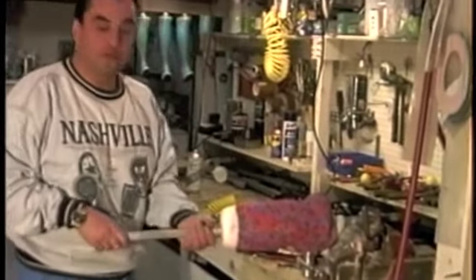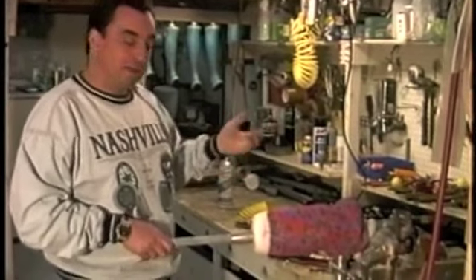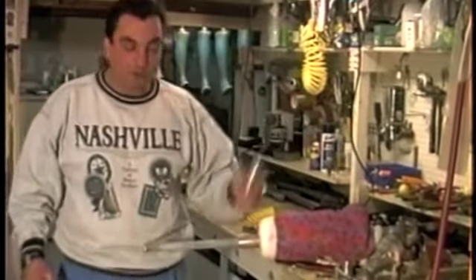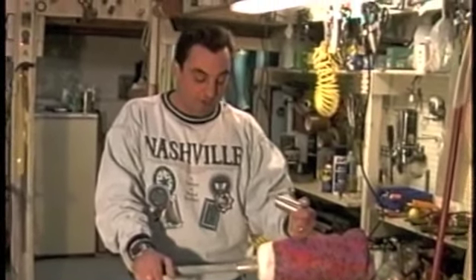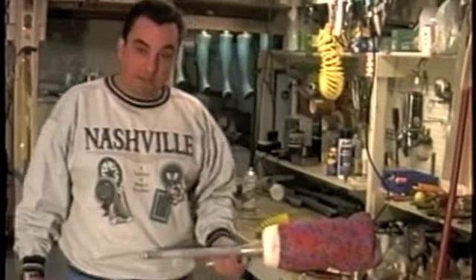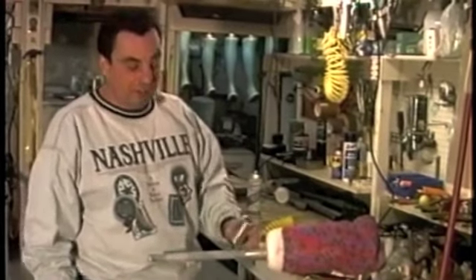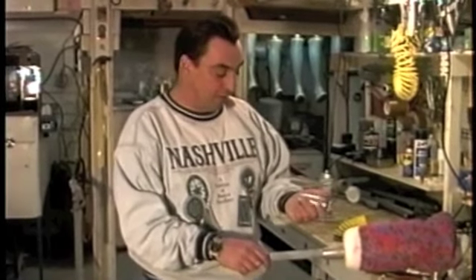You insert the molding cone. There's also a calculation in the manual for all this, but it's really a feel you develop. An important point: if you're questioning whether to use the small or the medium, always go with the smaller molding cone. After we vacuum form this prosthesis, we'll be left with a seam or union down the whole back side that we can use to fine-tune and adjust the flexibility of the pylon. So always go with the small, leaving more cylindrical pylon area, and you can trim the seam as desired when dynamically aligning the patient.